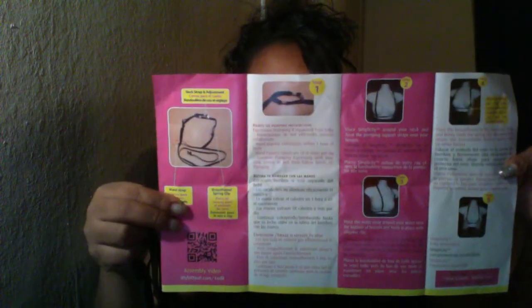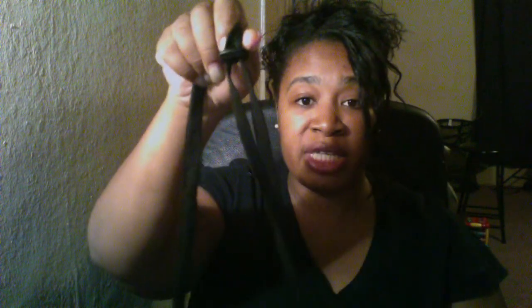So whoever wins the giveaway, I'll be sending all the pamphlets with it so you'll know how to use it. Let me put it on. As you can see, the upgrading part — this is the most recent, newest model. This little clip, the gathering clip, compared to the older one — big difference, right? It feels a whole lot different on too.